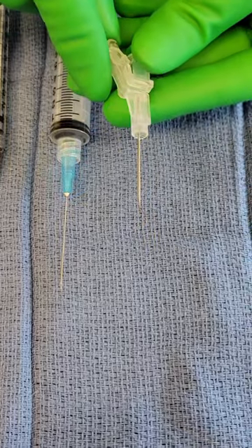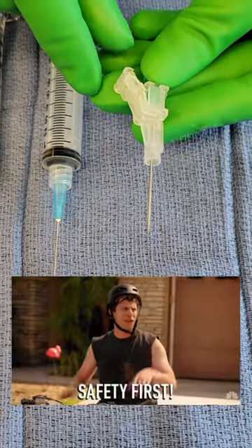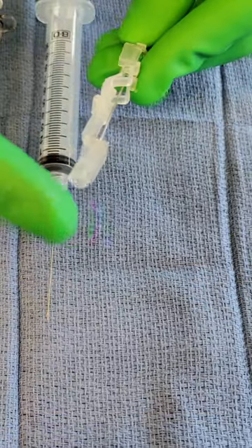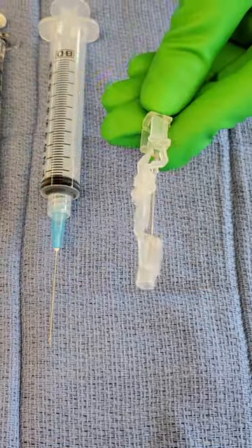This is called a safety glide needle. It has a safety function on it so that when you're done injecting, you can push this forward and the tip is protected.